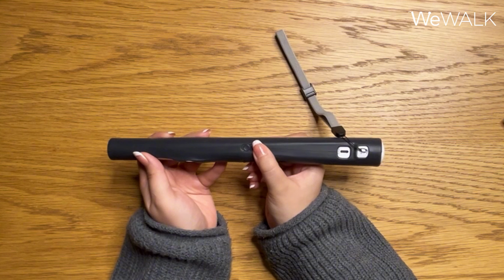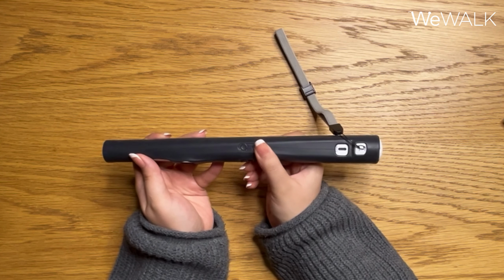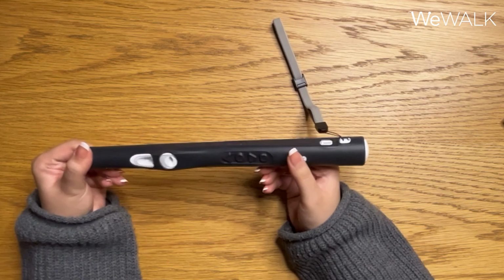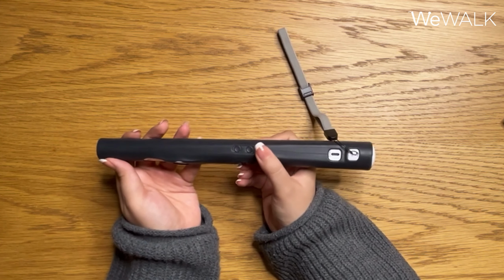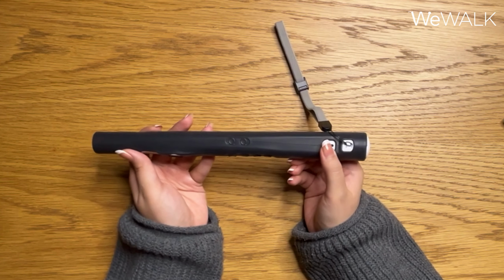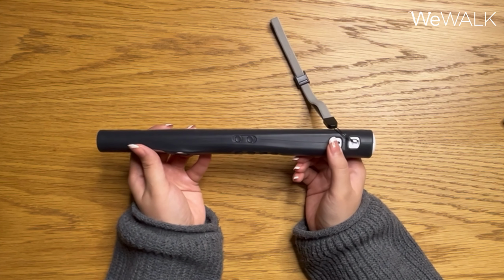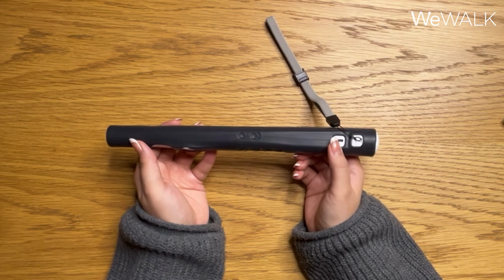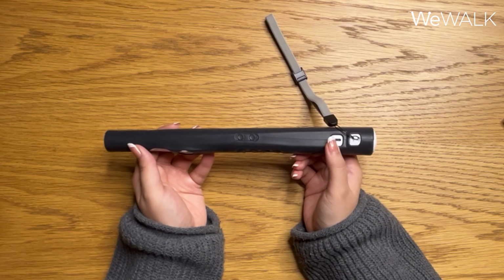Short. If I press it a second time, it will say mid. Mid. And if I press it a third time, it will say far. Far. And if you press it a fourth time, the obstacle detection will turn off. Obstacle detection is off. So scrolling through these options, you can either set it to short, mid, or far. For indoor environments, we recommend the short and the mid option. And for outdoor environments, we recommend the far option.